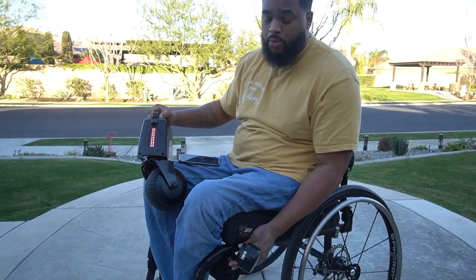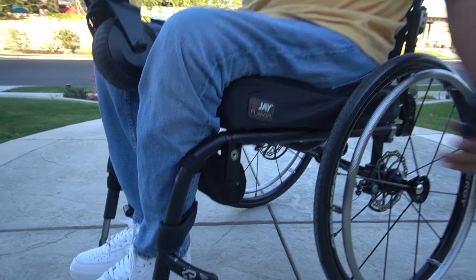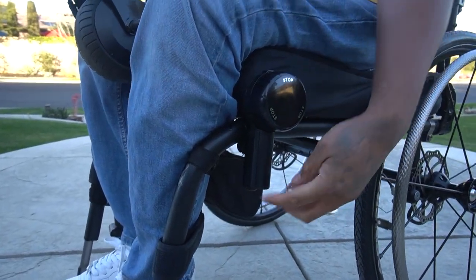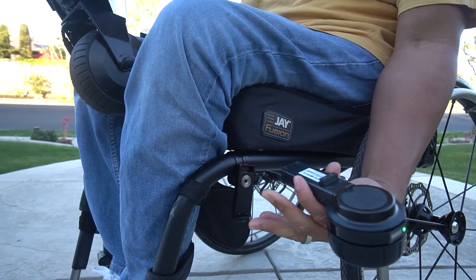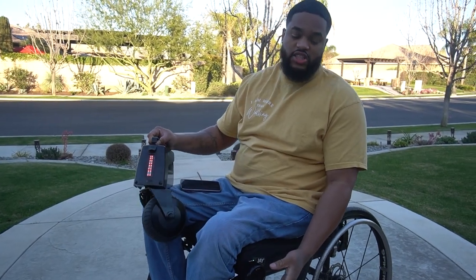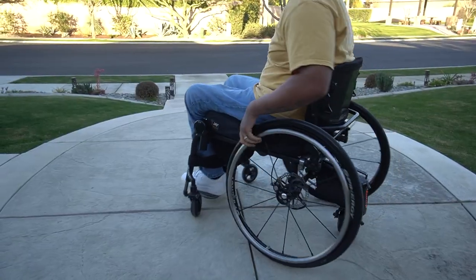Right now I'm about to connect it to my wheelchair and we're about to use it. But before we do that, I'm going to show you guys how to actually use the unit. This is the remote. The remote goes onto the bracket on the side of my wheelchair. We had to put this one on and also the one in the back. It has a quick release at the bottom — there's a little button right there — and you press it and it should pop right out. You turn the knob to go forward, and if you want to stop really fast, you just tap it. When putting the device on, you might need a little help. I got long arms and I still need help. I normally use a mirror and kind of try it that way, but even then I still have a little trouble.